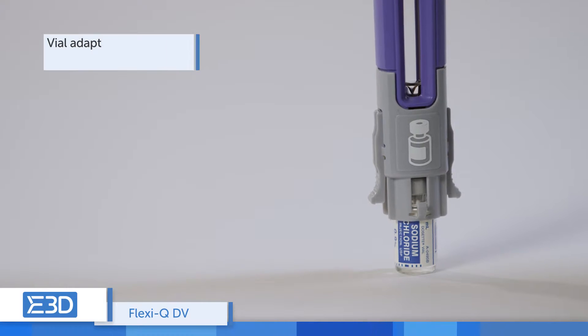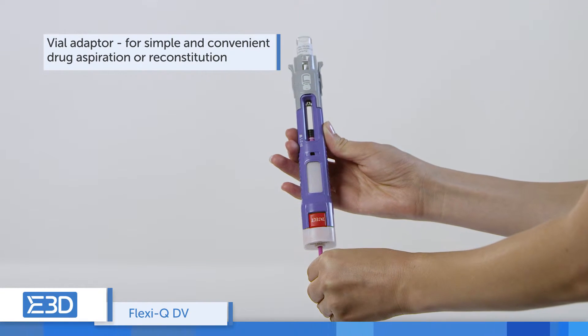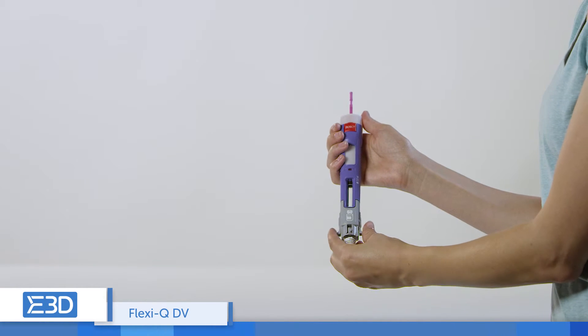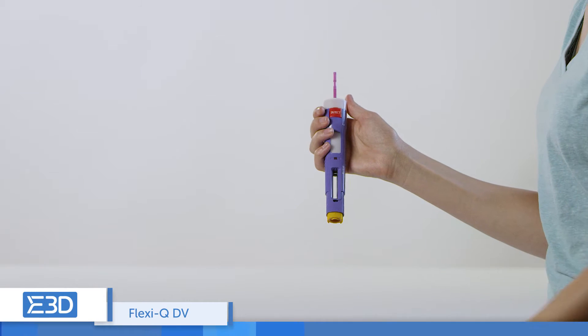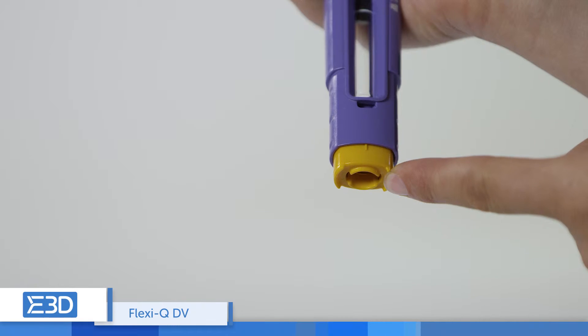The vial adapter is used to connect the device to the vial for easy drug aspiration or reconstitution. Intended for both liquid and lyophilized drugs, the FlexiQ DV's fully automatic injection process and protected needle assure patient safety and compliance.